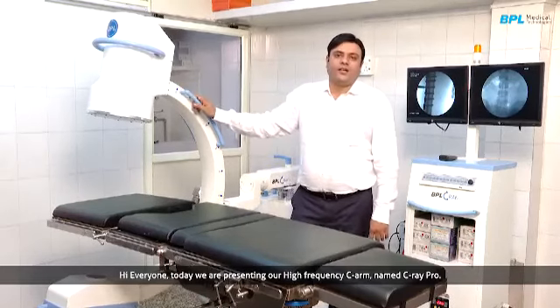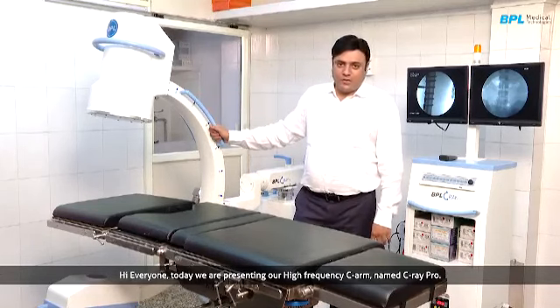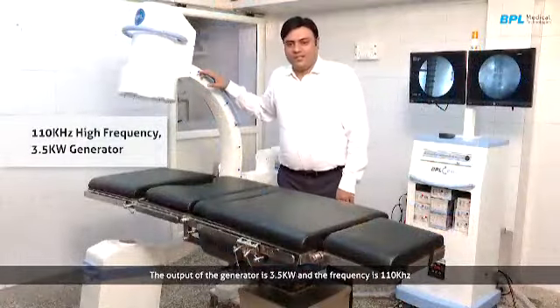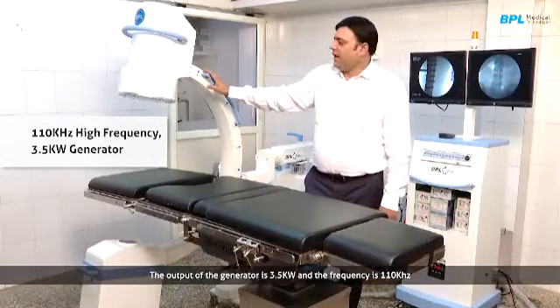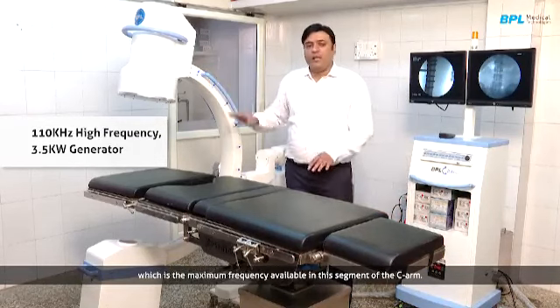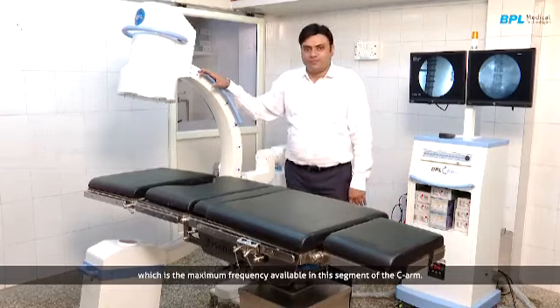Hi everyone, today we are presenting our high frequency C-arm named C-Ray Pro. The output of the generator is 3.5 kilowatt and the frequency is 110 kilohertz, which is the maximum frequency available in this segment of C-arm.